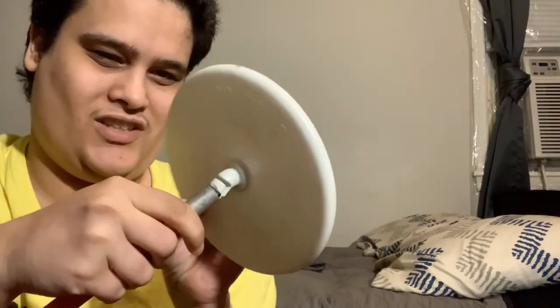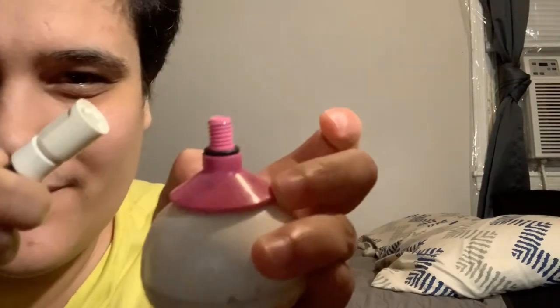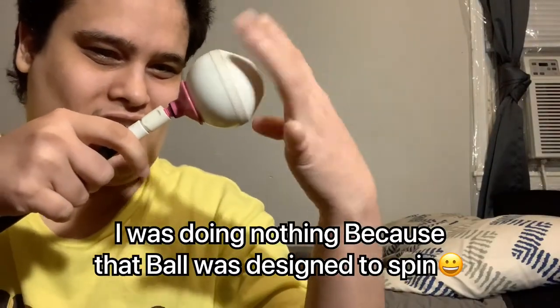This disc is specifically made so that it can swivel around, because it's made to go on uneven surfaces. The second way is a threaded tip — it's like a bottle cap. It just threads in and you screw it on.